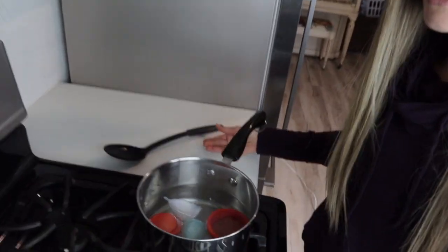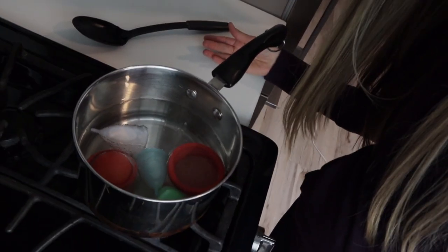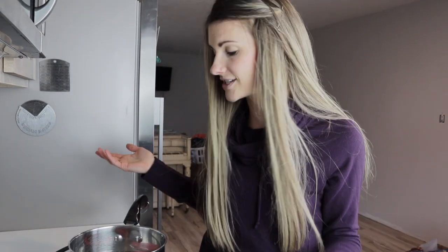It's literally just as simple as throwing your menstrual cups into a boiling pot of water. Especially the first time you use them, they are clean. So there's really nothing weird that's going to happen.